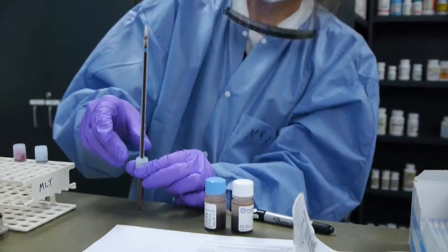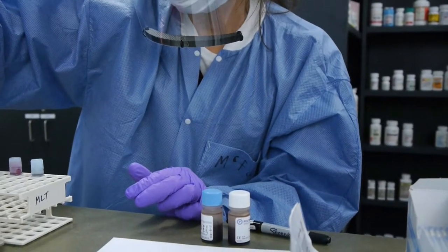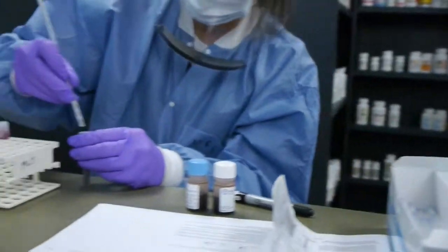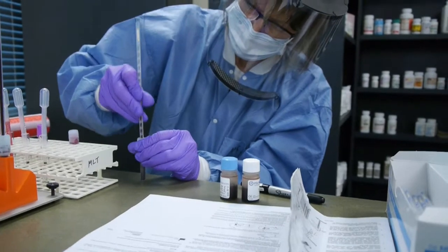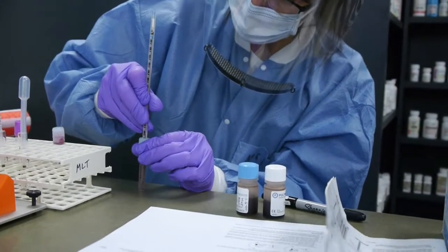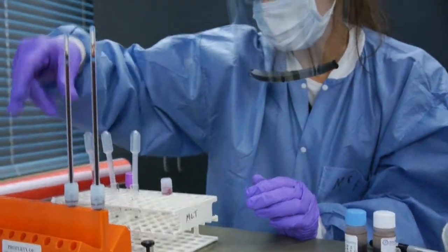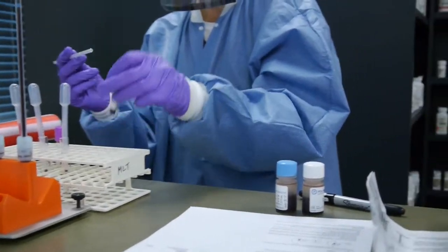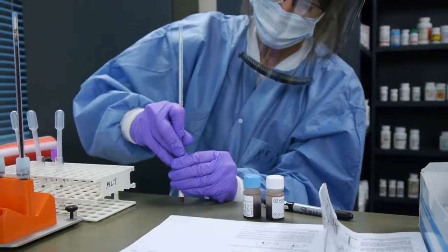There's an overfill zone so the device takes care of any extra. Keep going with a twist, then push it up. When you're on internship, your preceptors will give you all sorts of helpful hints. Do what makes sense for the facility and your standard operating procedure.